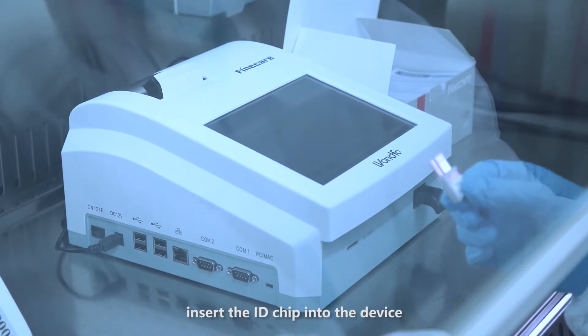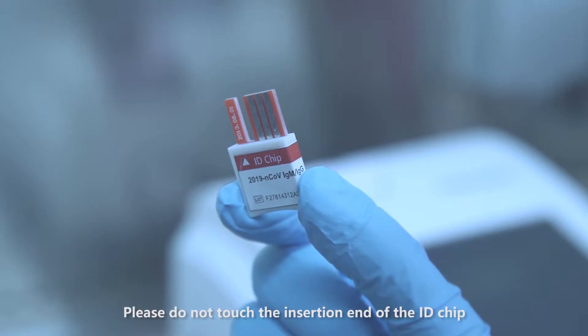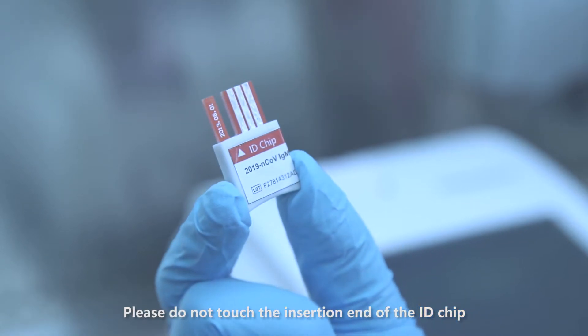If consistent, insert the ID chip into the device. Please do not touch the insertion end of the ID chip.